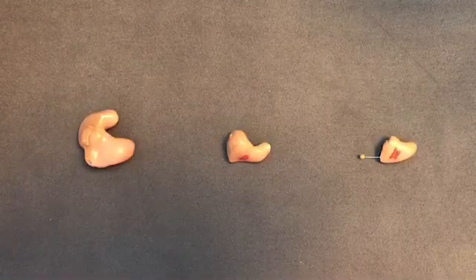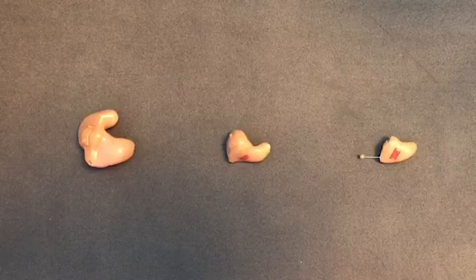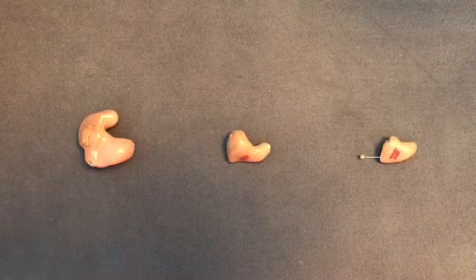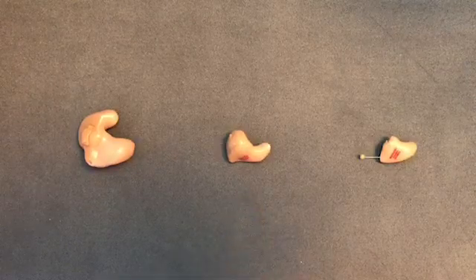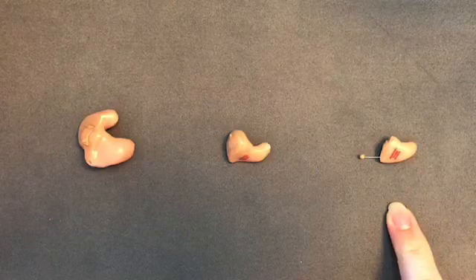Hi and thanks for stopping in today. We're going to be reviewing the parts of custom in the ear hearing aids. This first style on the left is a full shell in the ear or ITE device. In the center we have an in the canal or ITC device, and at the end we have a completely in the canal or CIC device.